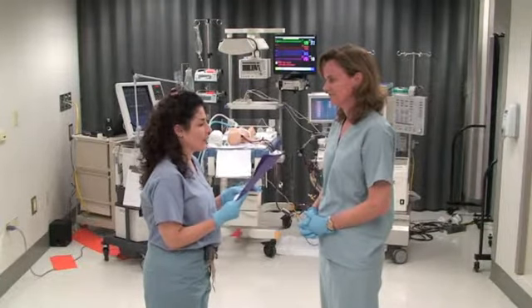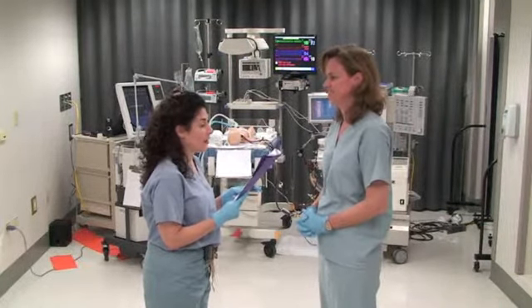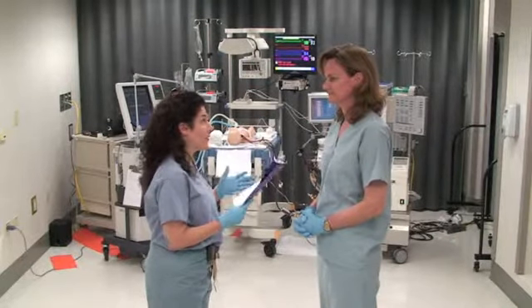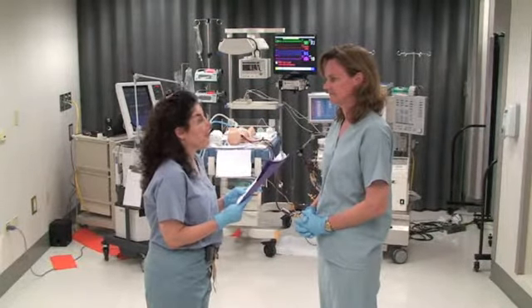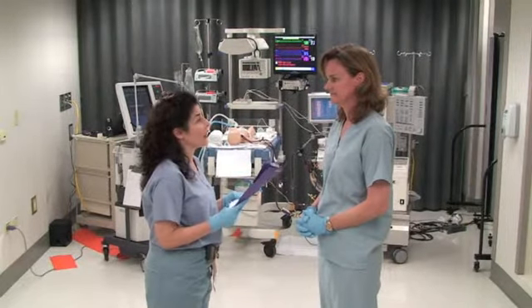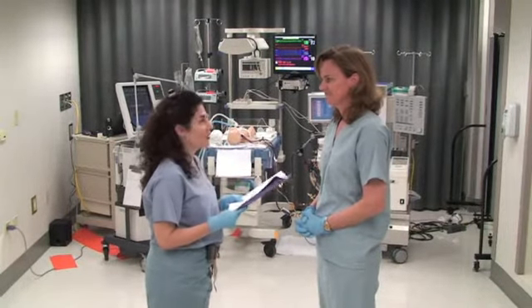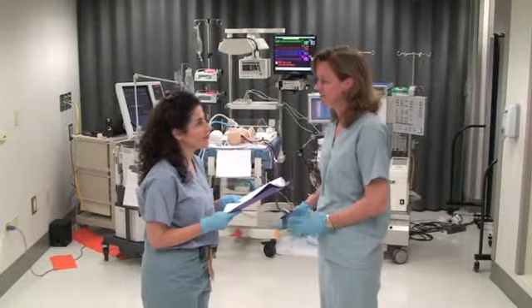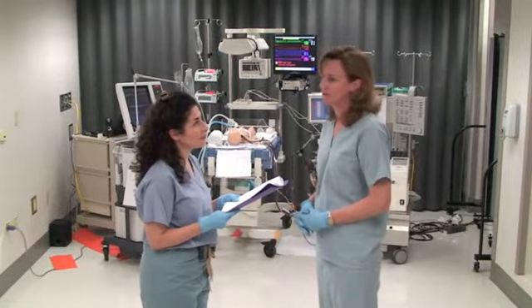You recognized that the problem had to have been downstream from the oxygenator. You also had some discussion about the patient's positioning and the need to get volume and other essential things that would be clinically relevant. That was a little more stressful. How did you feel? It was a little stressful, but I thought our communication was really good — trying to solve the problem.